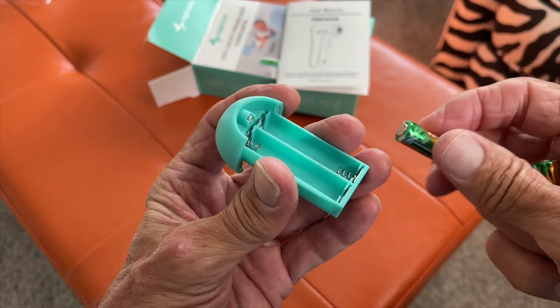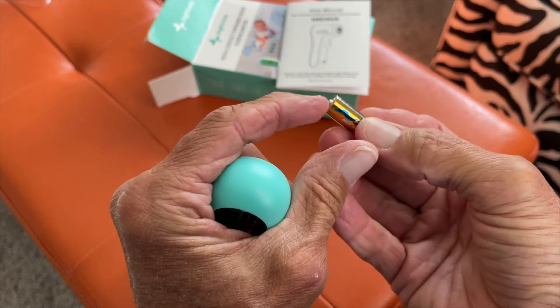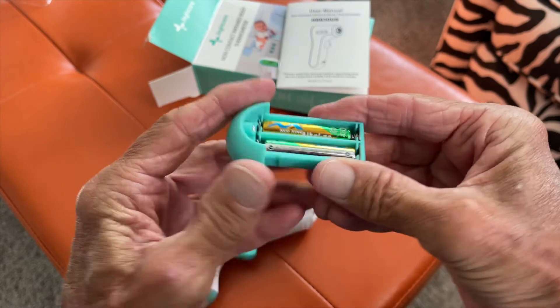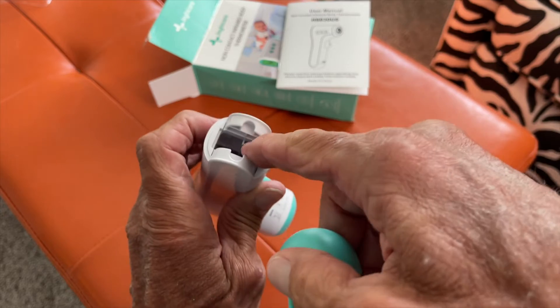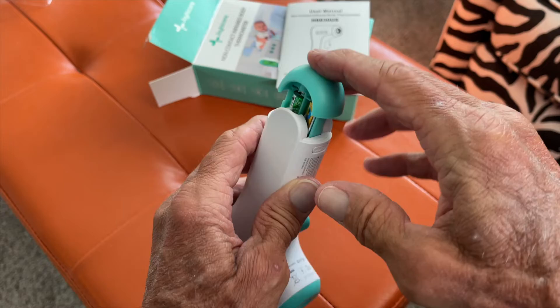If you look inside here, you're going to see how to put the batteries in. The negative side's here, positive side's there. That's the positive side, that's the negative side, and it's opposite on this one so you've got to do it this way. Then all we've got to do is slide it back in. There's a little ridge right there, and on the back here there's a ridge too — that's the way it goes in.